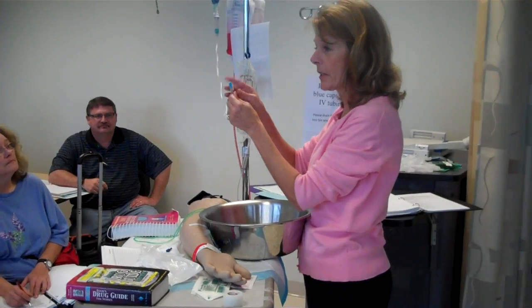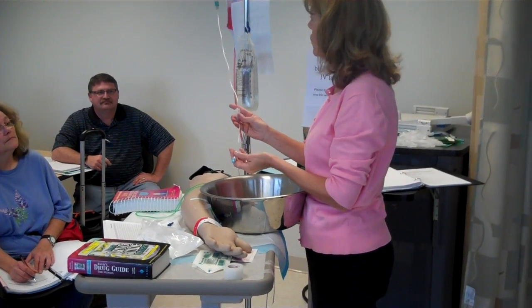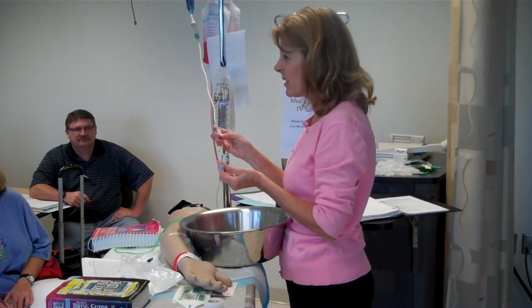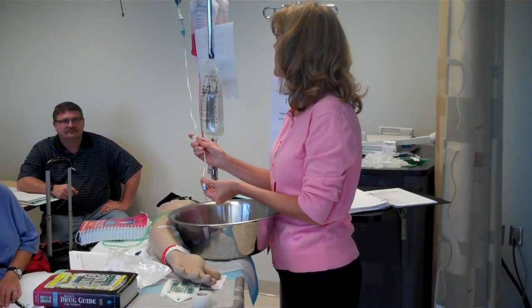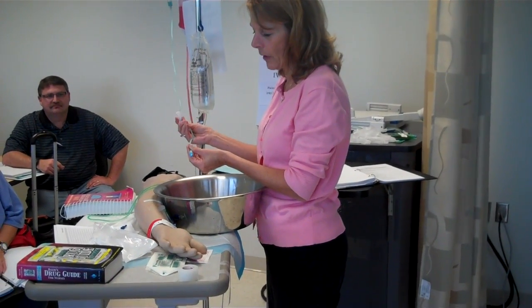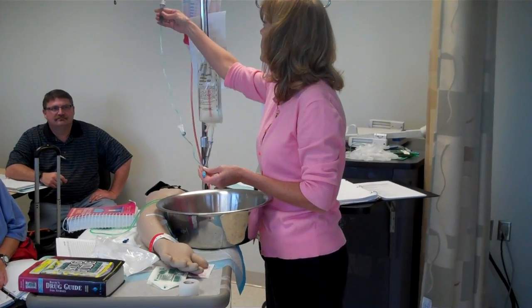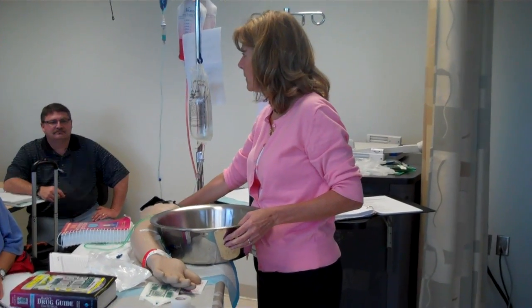Alright, so you really don't want to waste any of the medicine. This is vented, so you don't have to take that off. It'll say sterile. There aren't any Y ports on this, so it's pretty easy to just prime it and not get any air in the tubing. I'm just going to take my time and get it down to the bottom. Close that off, and let's go back and make sure we don't have any bubbles. Looks good.